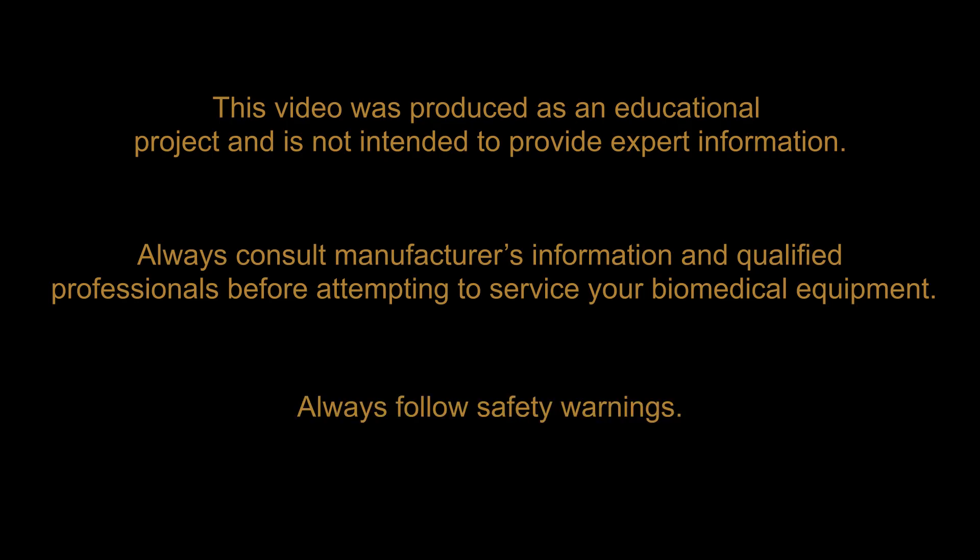Always follow safety warnings. This video will familiarize you with analog or non-electronic infant scales. Your infant scale may be different from the one presented here.